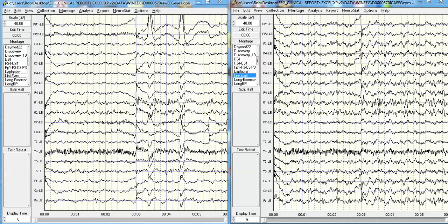The purpose of this demonstration is to show how one can verify that the phase and time differences have been distorted. This data comes from a workshop I gave on August 22nd to 26th in Adelaide, Australia, at the Applied Neuroscience Society of Australia — ANSA — in which one of the participants wanted verification that there is phase distortion. I asked that participant to produce an EDF file with the original data using WIN-EEG, then use that same original data to remove eye movement and create a second EDF file. He brought the data to the stage where I was present, with over 40 people in the room, and I was able to launch two NeuroGuides.